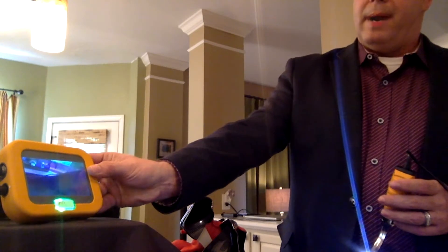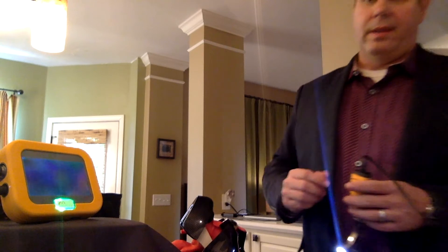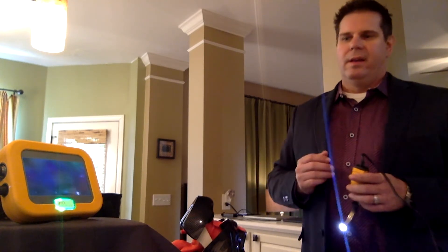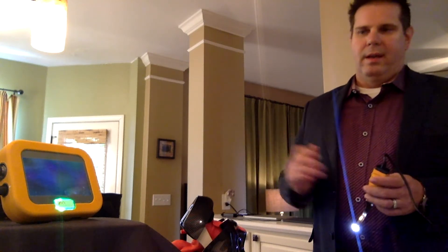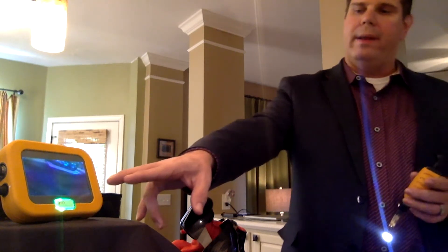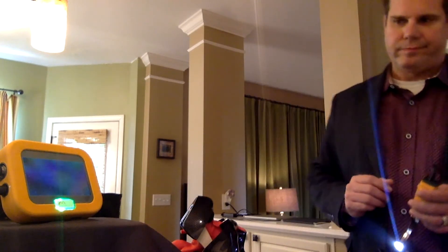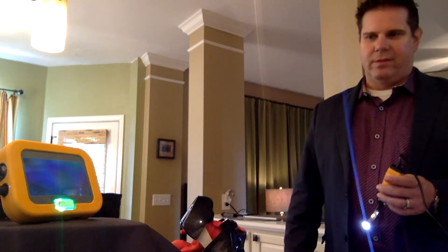In the bottom of the monitor, there's actually a battery indicator. It's green, which tells you you have three hours of visual viewing time. It's a lithium ion battery. It's easy to charge — it takes about a half hour to an hour to charge and it'll last you probably longer than the three hours stated in the IFU. When the battery starts to get lower, it'll turn yellow when you have 30 minutes and red when there's 15 minutes, just to give you an indication.